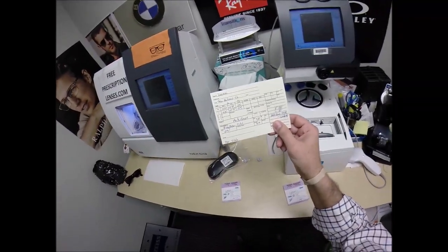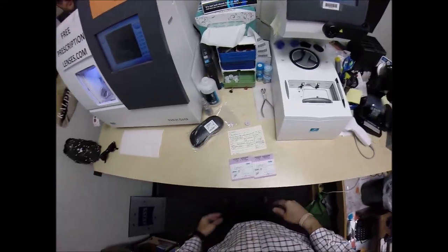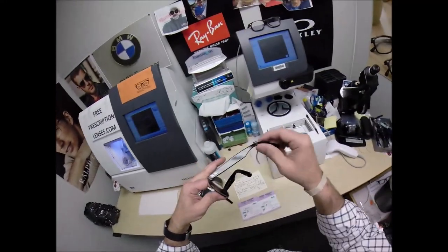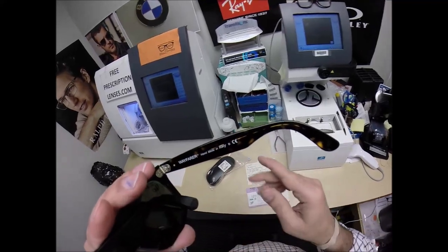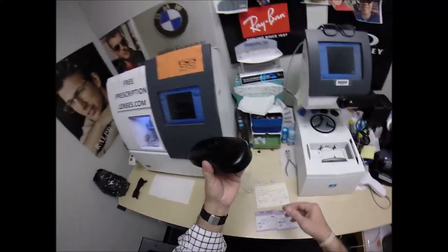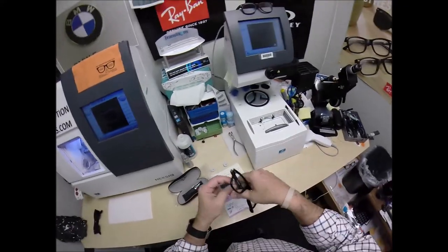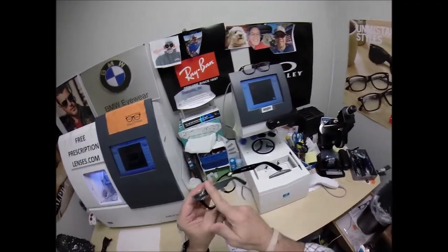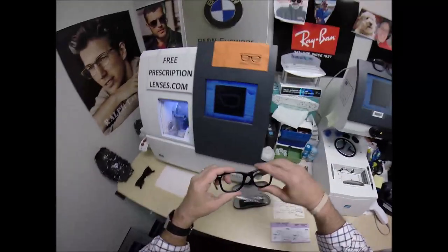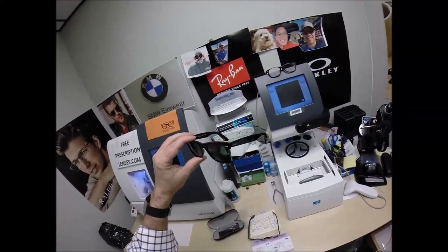Before I begin, I want to give a shout out to Poo — your little brother in Italy. I don't know if he's in the military or just stone cold mafia or a little bit of both, but a shout out goes all the way to Italy where these original Wayfarers are handmade. Let's go ahead and begin — take your Ray-Bans out of the original packaging: the hard shell Ray-Ban case, Ray-Ban cleaning cloth, and the little plastic sleeve on the left temple to protect the temples from rubbing during shipping. This is the ophthalmic version of the classic — this frame was invented in 1952.